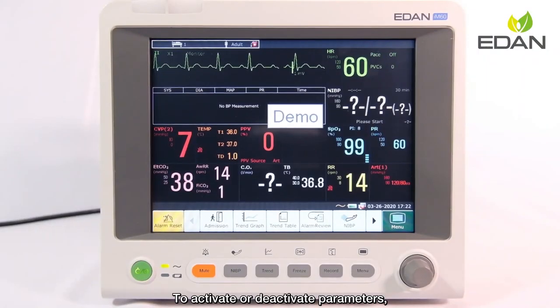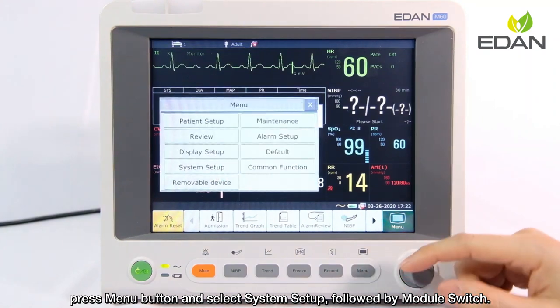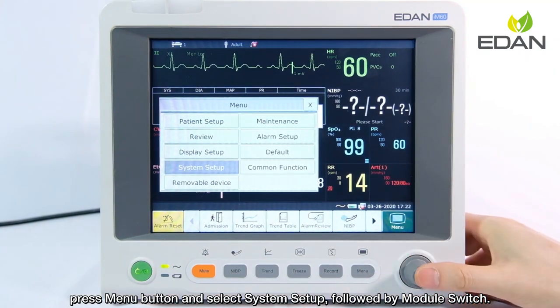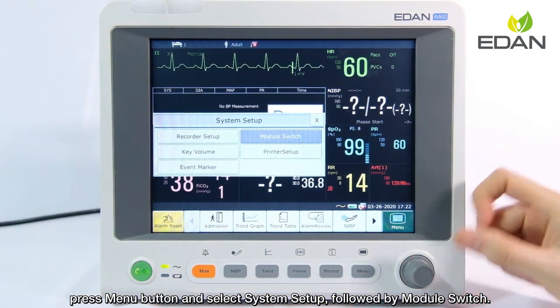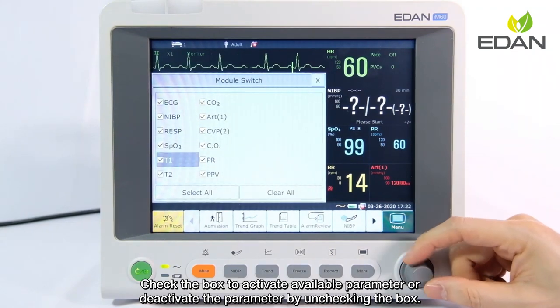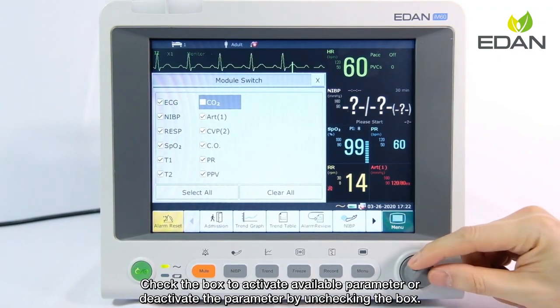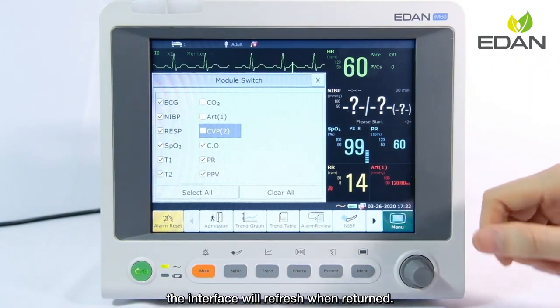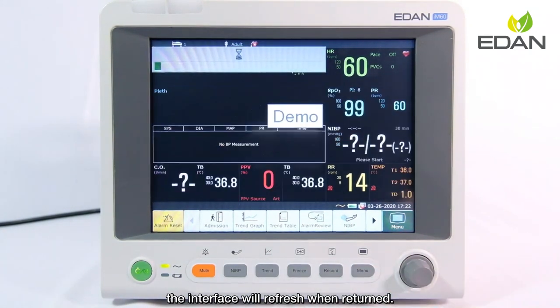To activate or deactivate parameters, press the menu button and select system setup, followed by module switch. Check the box to activate an available parameter, or deactivate it by unchecking the box. The interface will refresh when returned.